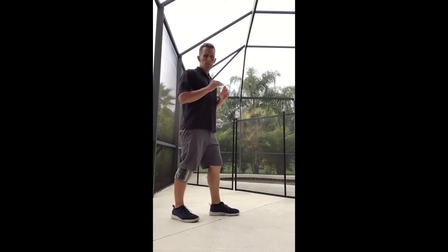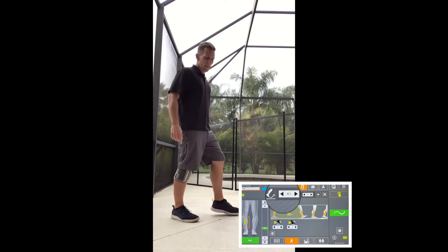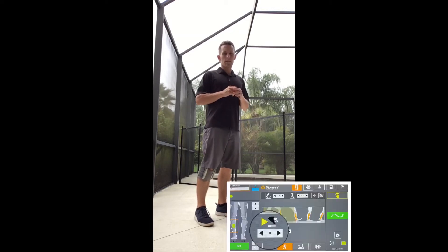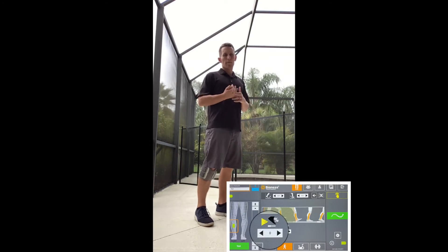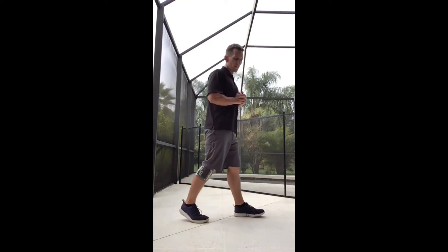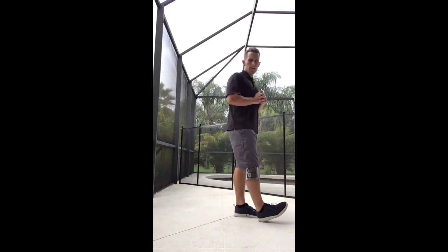In the upper left corner with the 0.1, let's say a patient has the intensity going pretty well, but they're still skidding or catching the toes every time. You can change that ramp up time down to 0.0. There is also a delay button to the lower left that starts at 0 — you can change that to about 5 to 10% into pre-swing phase if you want them to finish that push off to allow for more clearance with swing. Combining a little delay with decreasing the ramp up time can help reduce toe catching episodes.